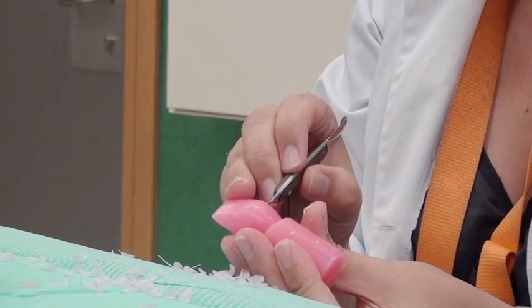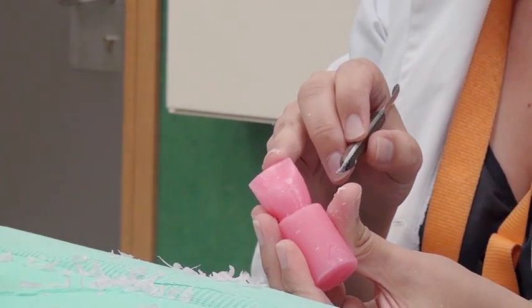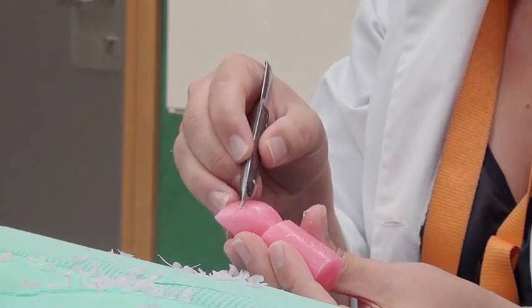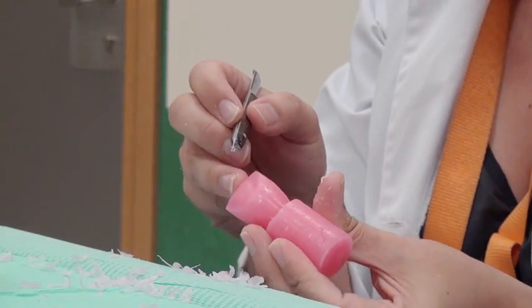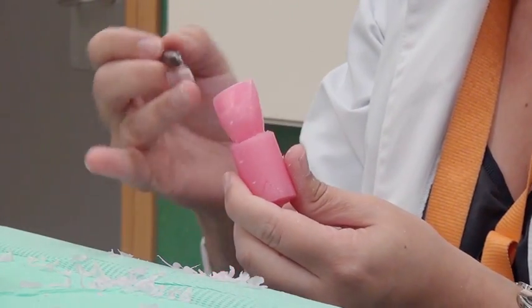It is observed that the line traced at the beginning remains intact. A bulge must be achieved at this level.